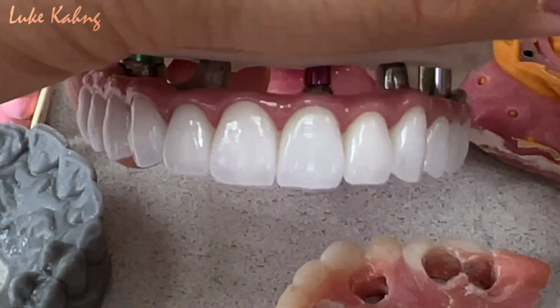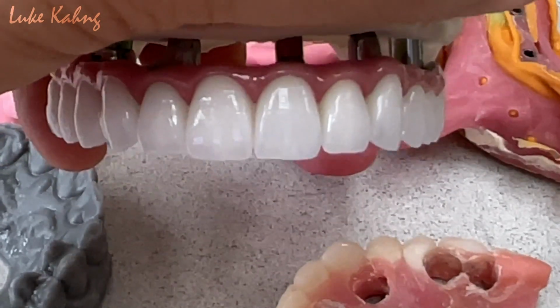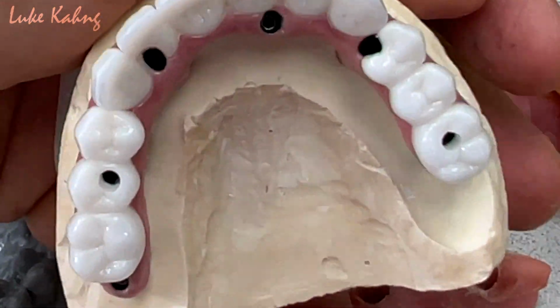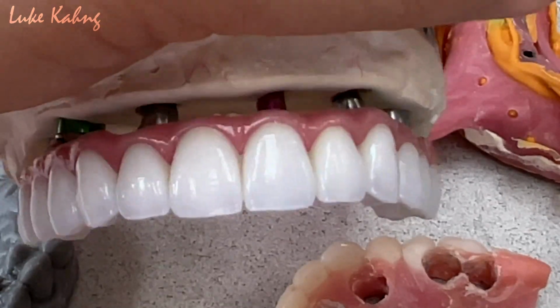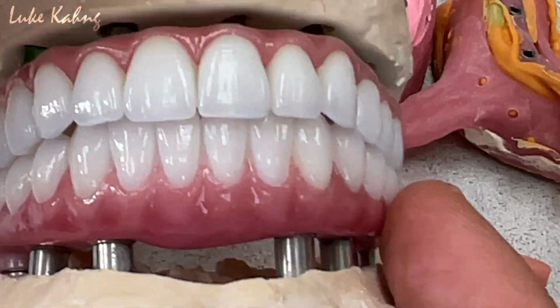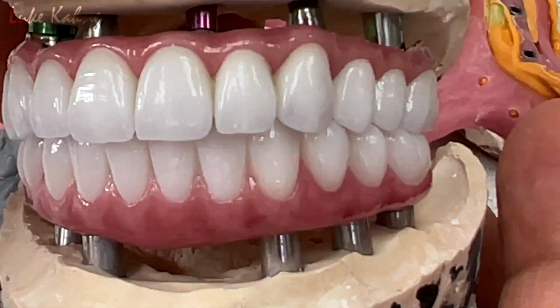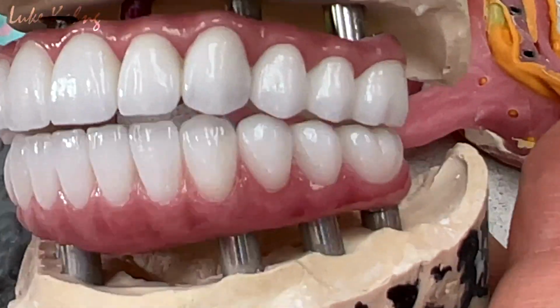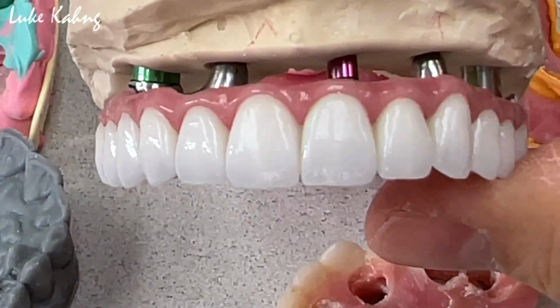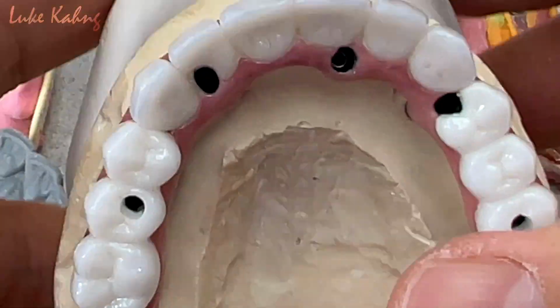So glad we finished. You saw all my work from the scanning, design, and milling regarding the framework and finishing it, and then on top of that individual restorations, and then here put together. That's the final. It's a lot of work, but this is the world-class 4-month case which we present to Dr. Wang in Georgia. So he'll get the great stuff, just like better than diamond actually.